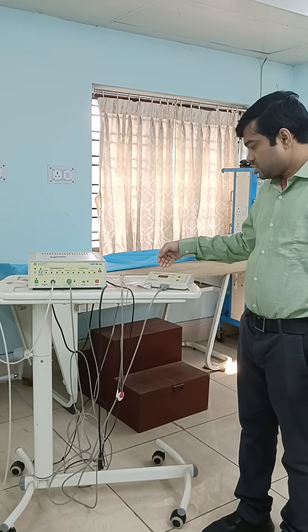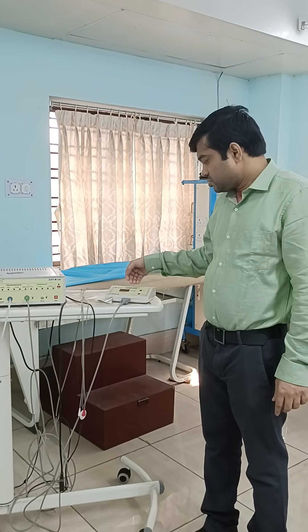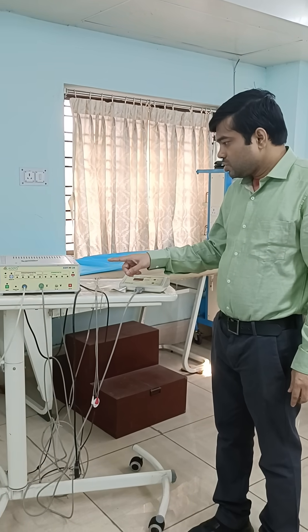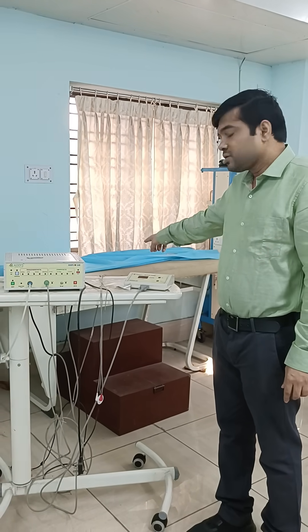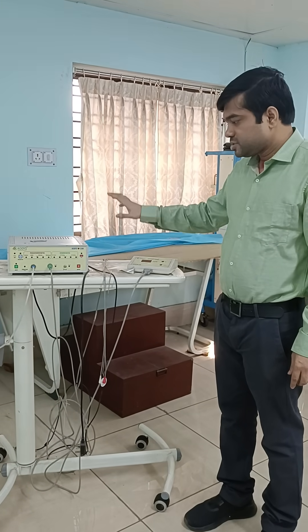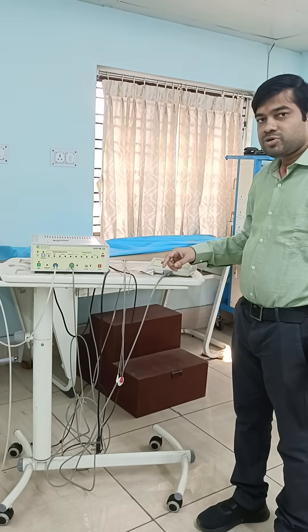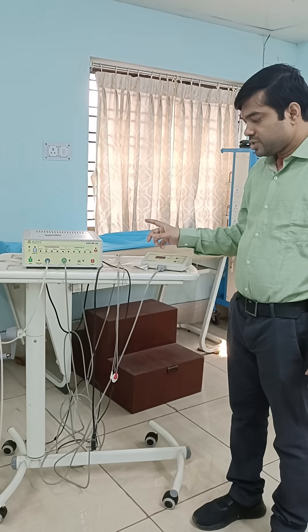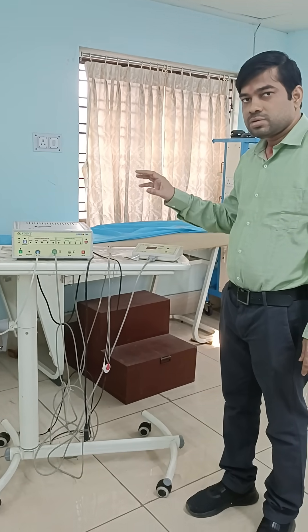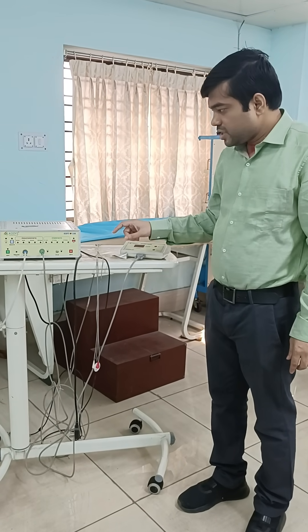The patient will be lying down on the bed and there will be proper connection of this machine. It will be connected to the laptop and there is software which we can use to generate the report of the patient.